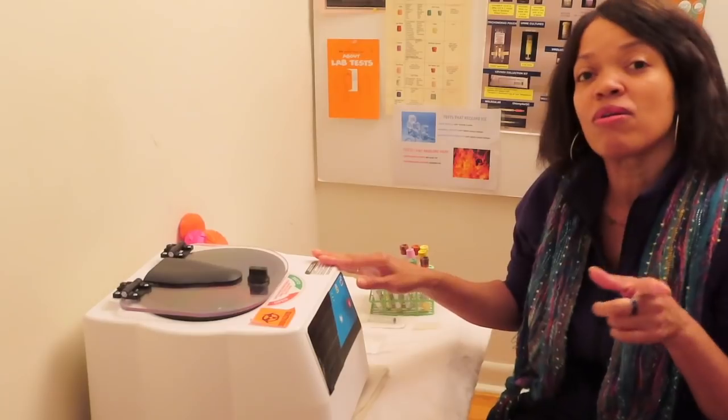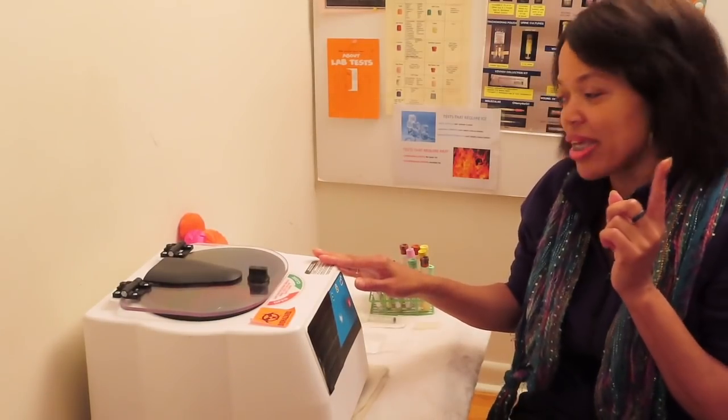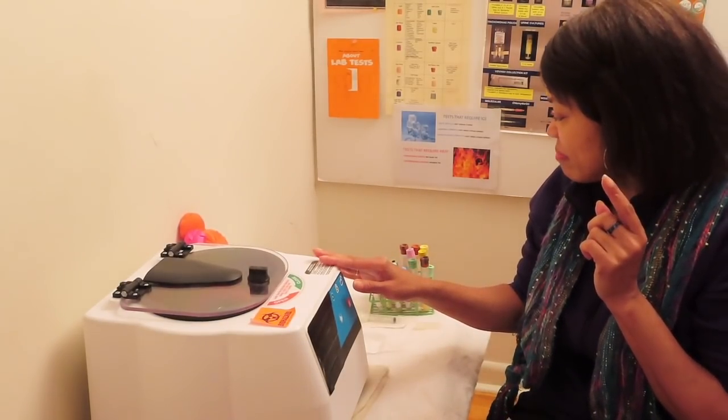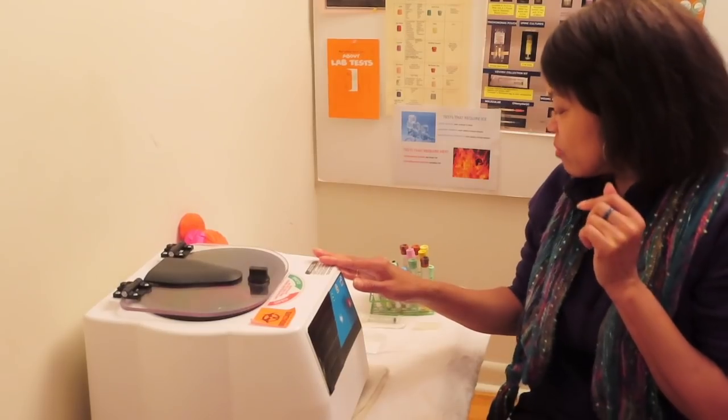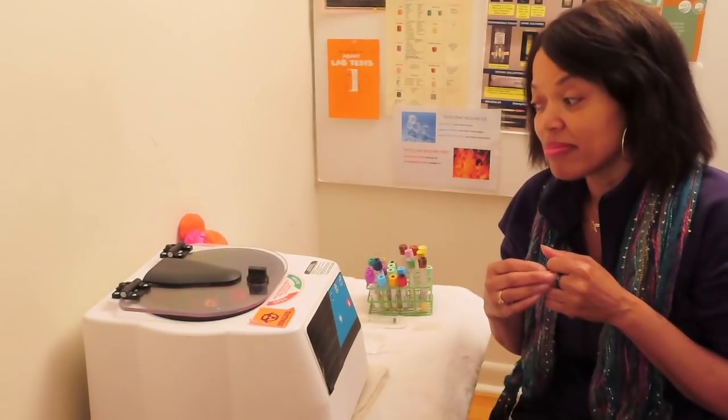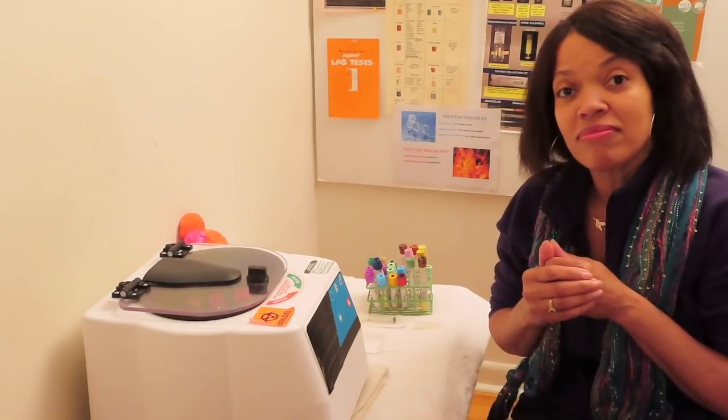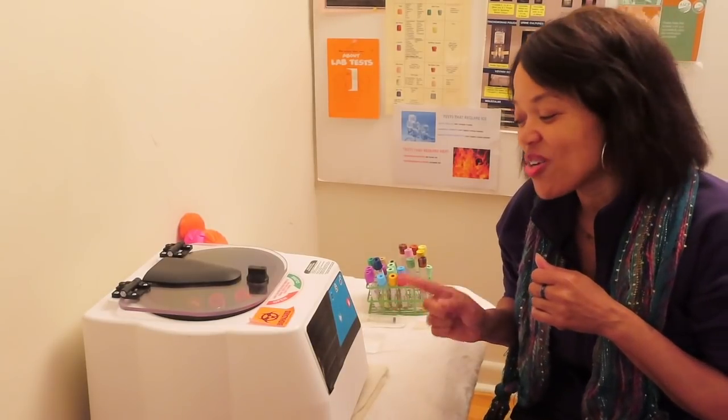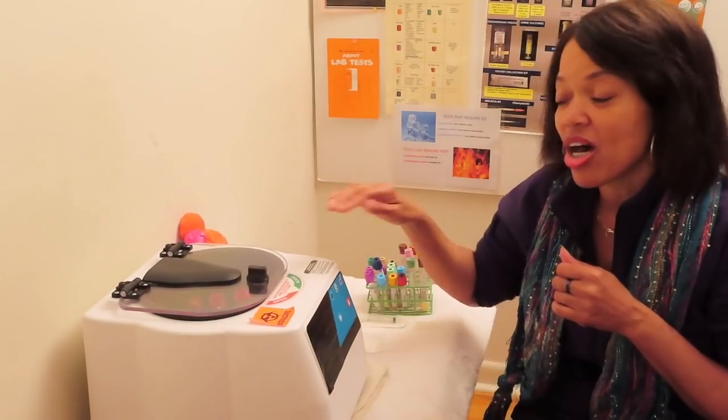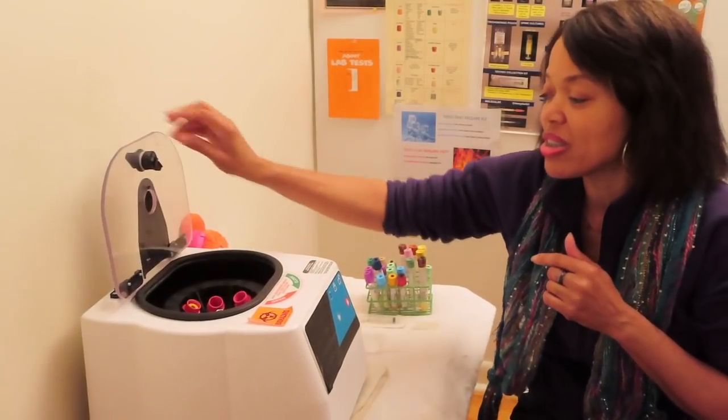So once it's finished spinning, we'll have serum. And we're good to go. Let it do its thing. This one doesn't beep. I like the ones that beep. What happens is it unlocks for you. So you know once it's done, it's done.